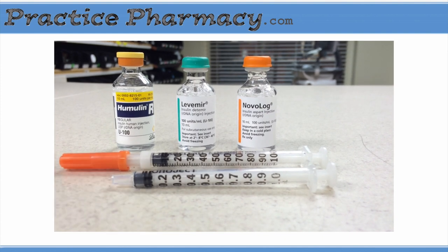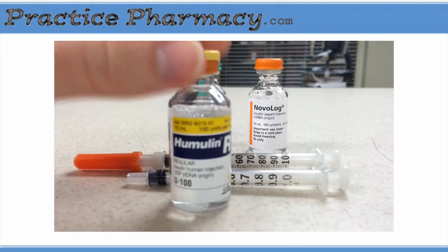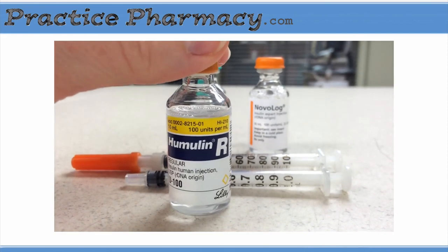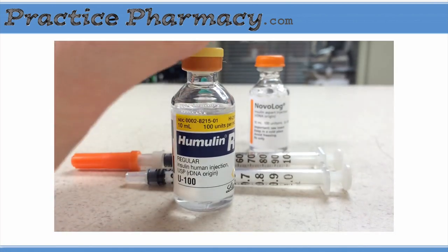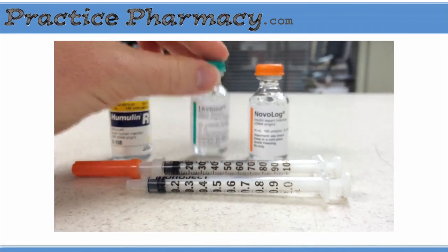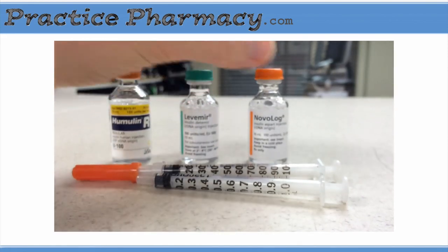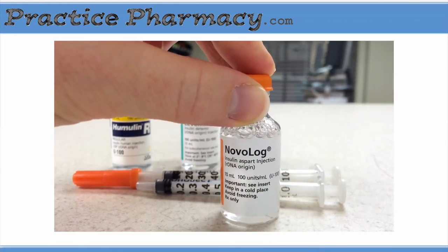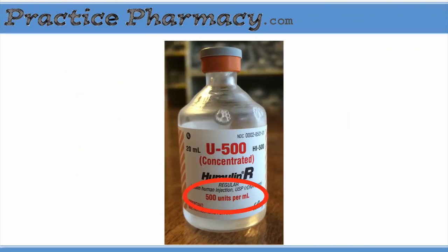This is three insulins and two syringes. The first thing I want to show you is the concentration on the insulin. As you can see right here, it's 100 units per mL, and the way that's indicated with insulin is that it's U100. So there's 100 units in a milliliter. That's the Humulin R. The Levemir is the same thing — 100 units per milliliter, U100. Novolog is identical: 100 units per milliliter, U100. Not all insulin is U100; there is some that's U500, which is five times more concentrated.